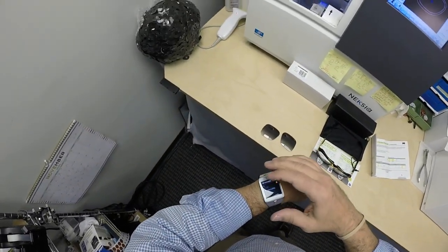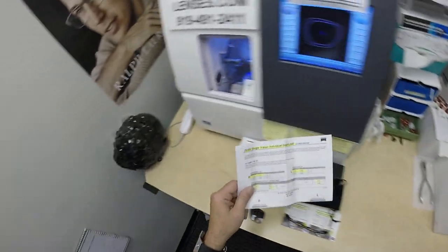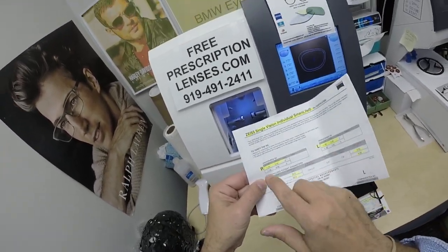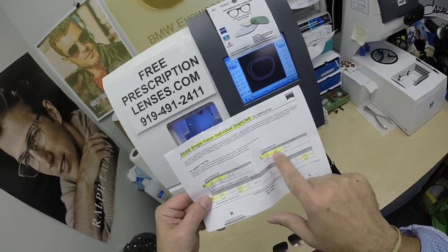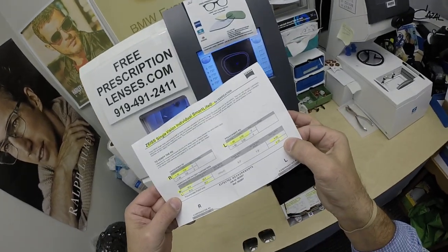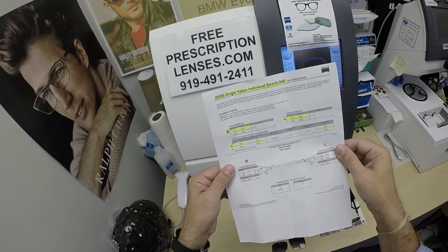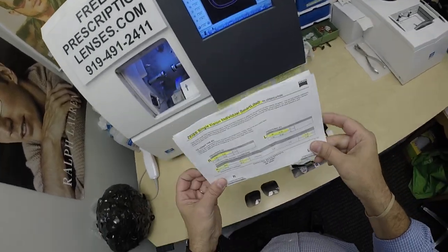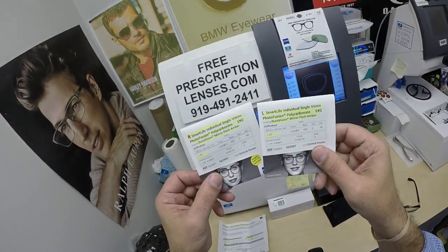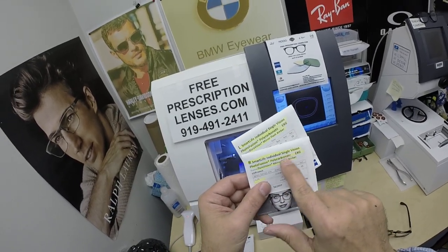Message from the wife — turns out we're having leftovers for dinner, my favorites. But I digress. The right eye prescription, the left eye prescription, the pupillary distance for the right and left, the optical center height, even the base curve of the lens. You get all the digital information on the Smart Life lenses when you purchase those. That is a digital free-form lens. You get the original packets that the lenses come in, highlighted for the right and the left — the Smart Life Individual Single Vision.